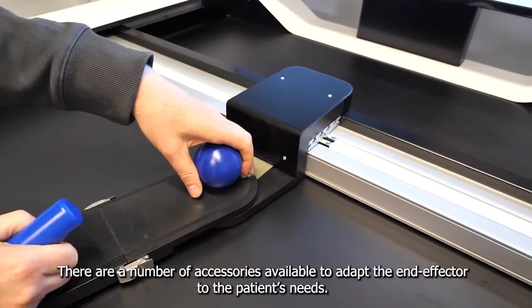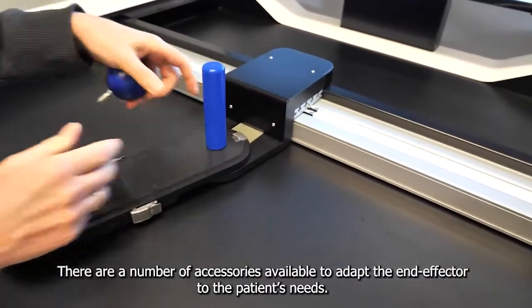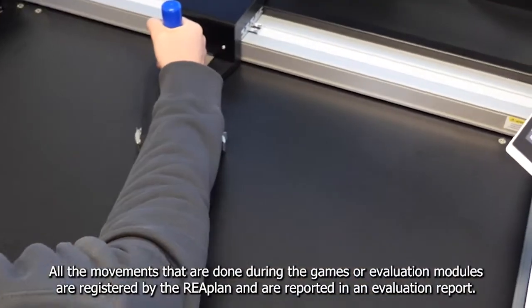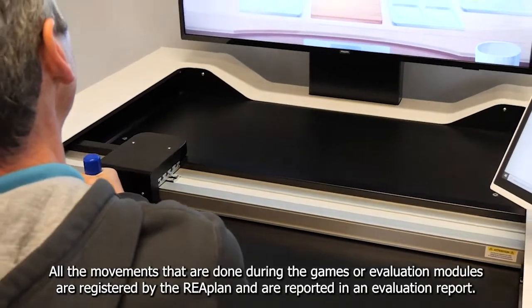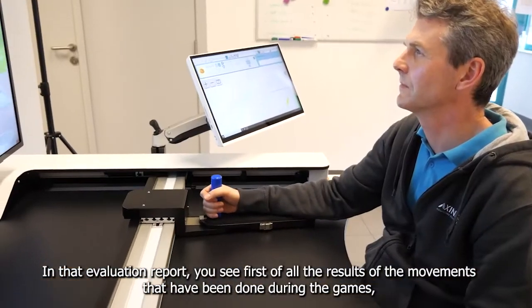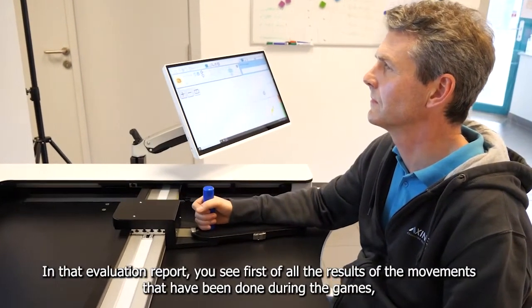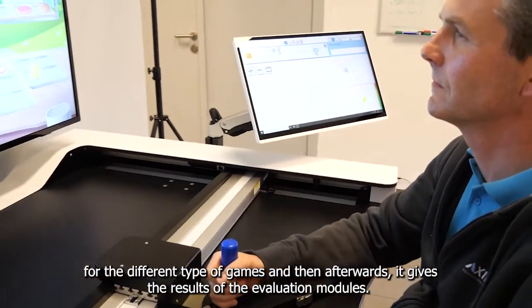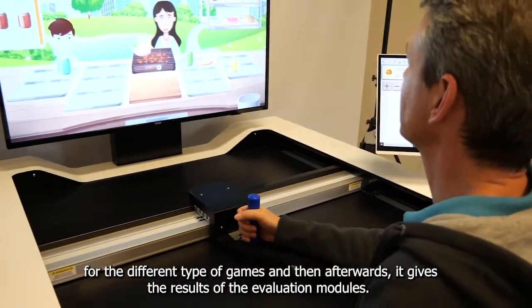There are a number of accessories available to adapt the end-effector to the patient's needs. All the movements that are done during the games or evaluation modules are registered by the Reaplan and reported in an evaluation report. In that evaluation report, you see first the results of the movements done during the games for the different types of games, and then the results of the evaluation modules.